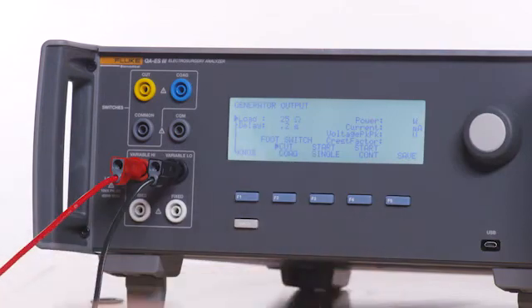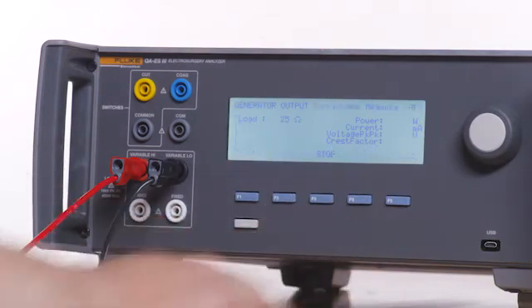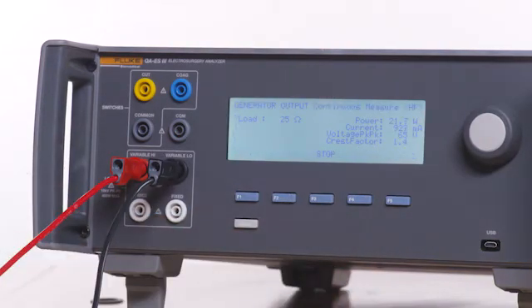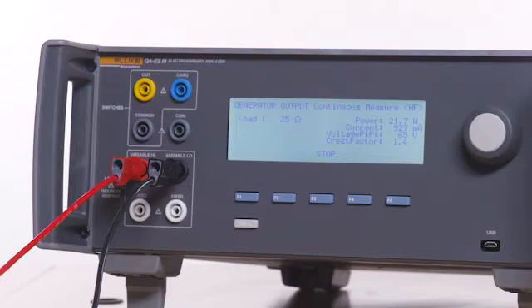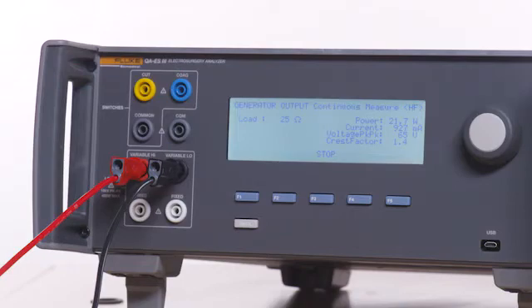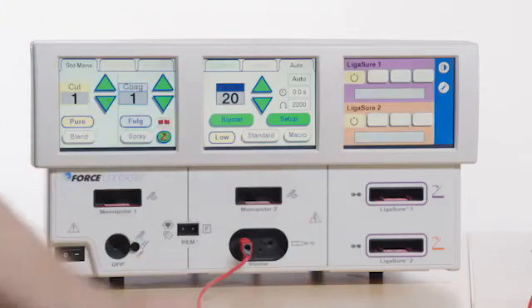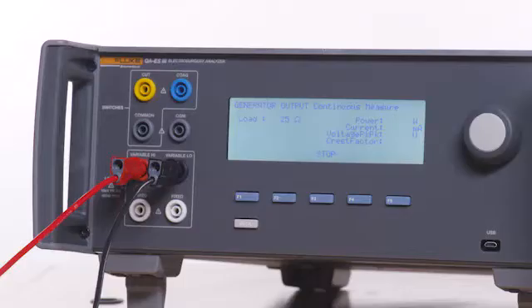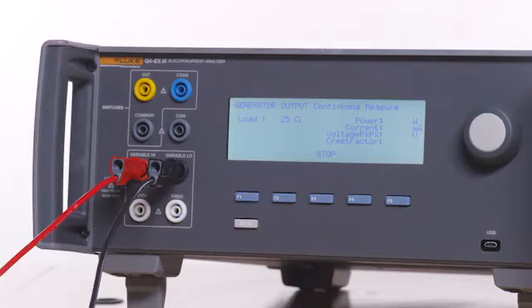Press F1 on the QAES3 for generator output and select a 25 ohm load. Press F4 for start continuous. Verify RF generation occurs automatically at 20 watts. Remove one of the test leads from the Force Triad.